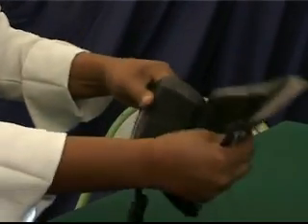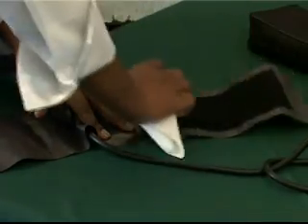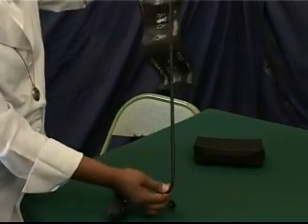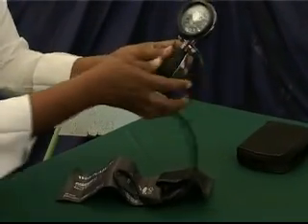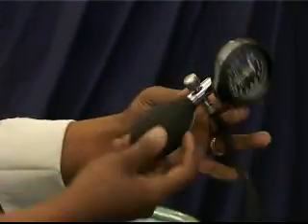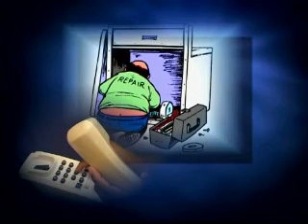Cuffs should be checked for leaks. Also check that the Velcro securing section is still functional and that it secures under pressure without pulling apart. The Velcro section must be clean — remove any bits of cotton wool if necessary. All tubing must be checked for cuts, holes, and signs of perishing. All connections must be airtight and secure. The airflow valve must be checked for smooth, easy opening to release the air, and ensure that it closes fully. All blood pressure devices should be sent to a qualified technician for checking and calibration at least once a year.